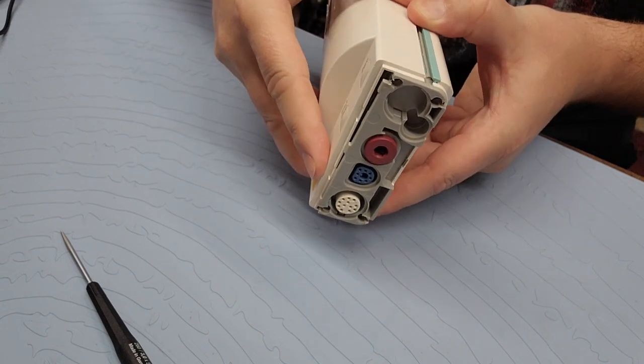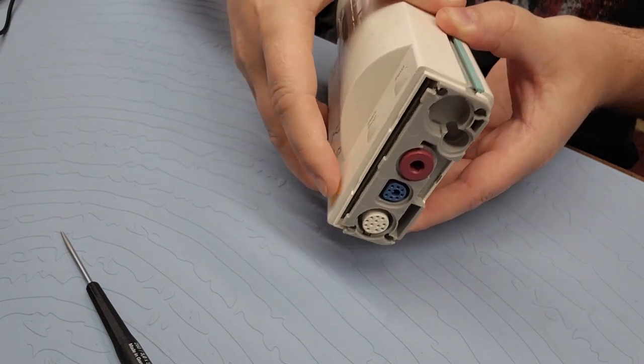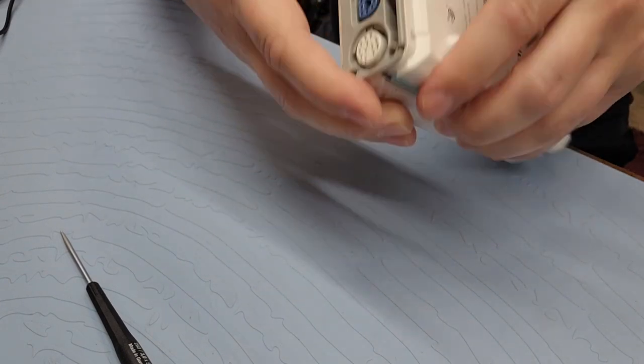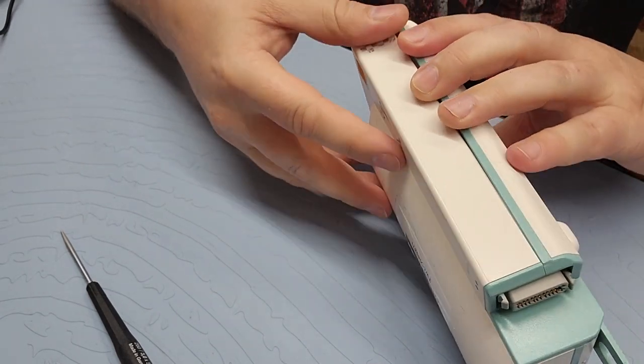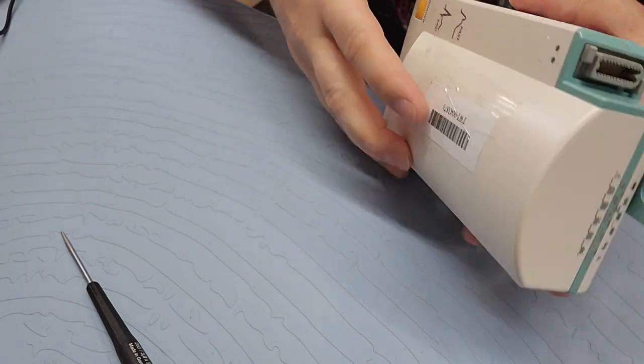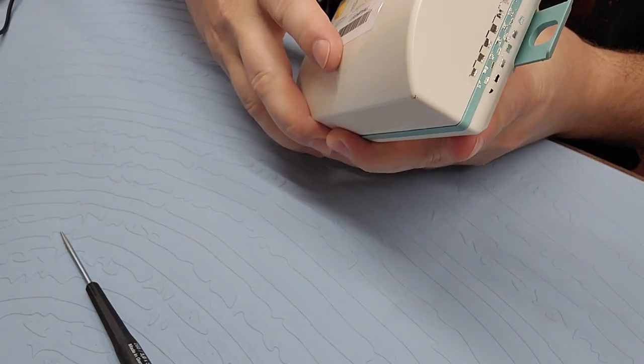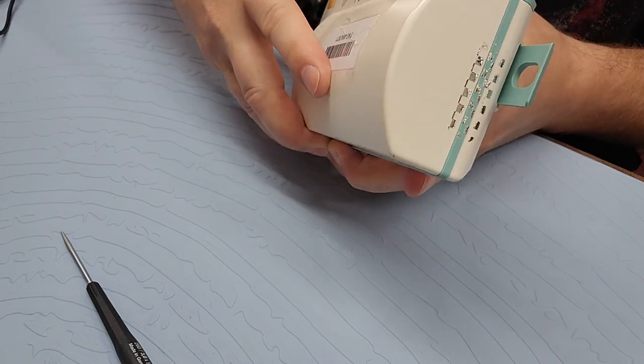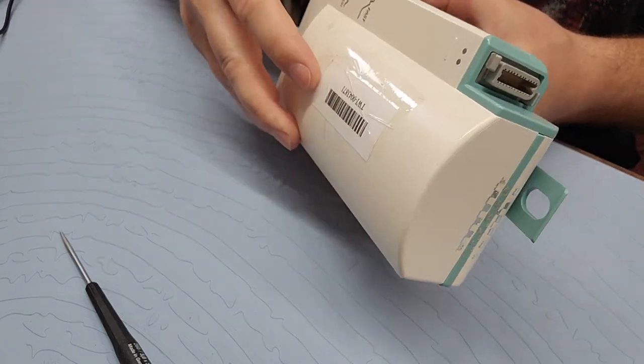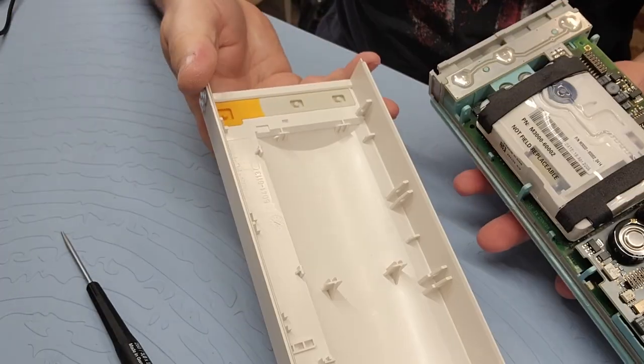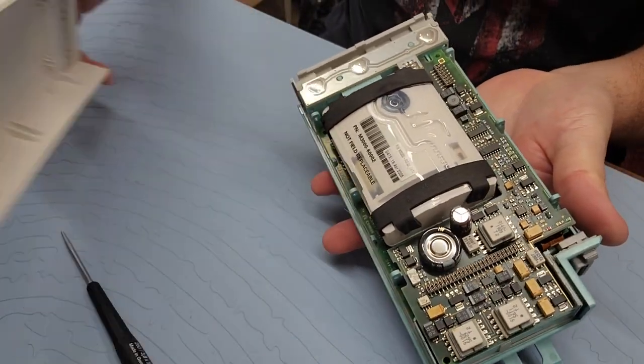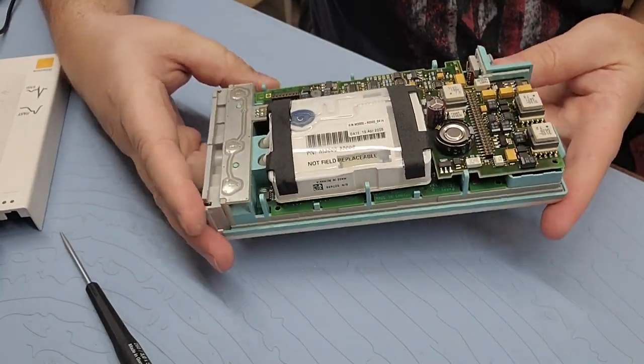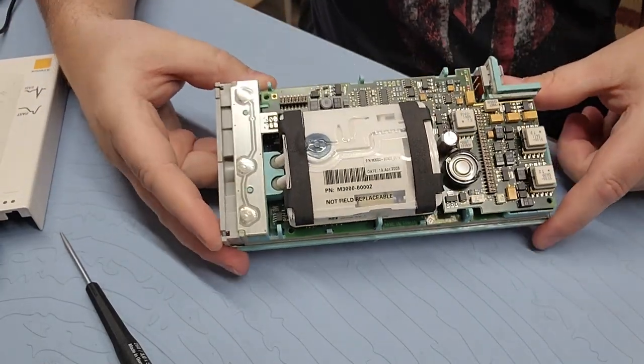So now, we can split it apart like a clam shell. I want to be very careful so I don't spill pieces everywhere. Come on. There we go. Alright. You can see, here it is. And here is the inside.